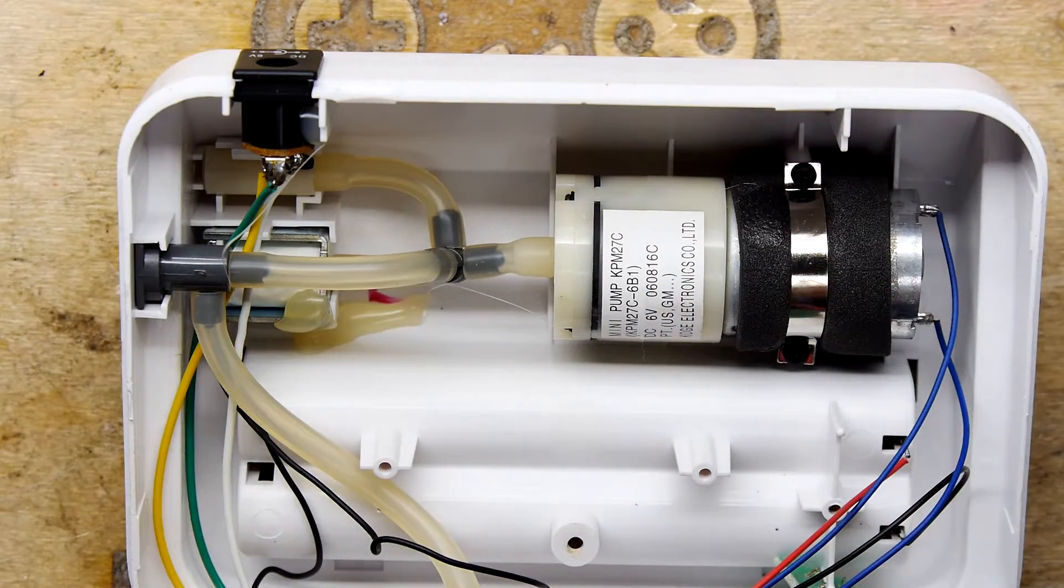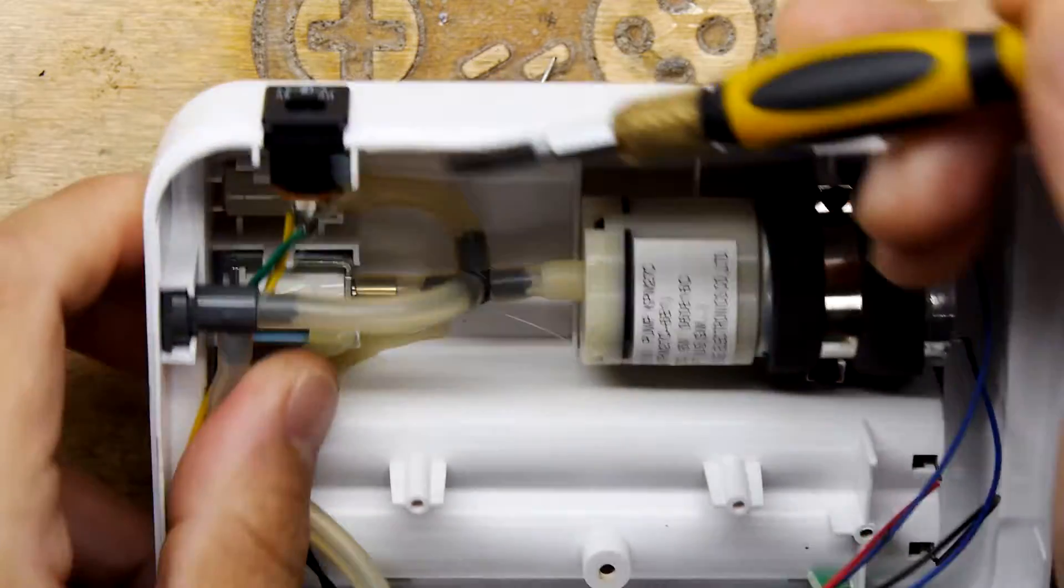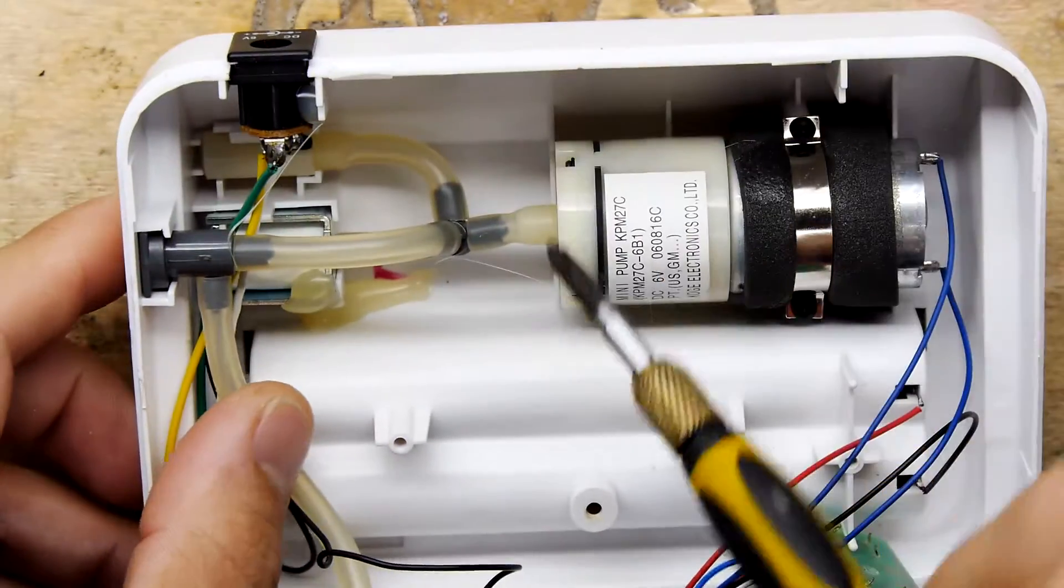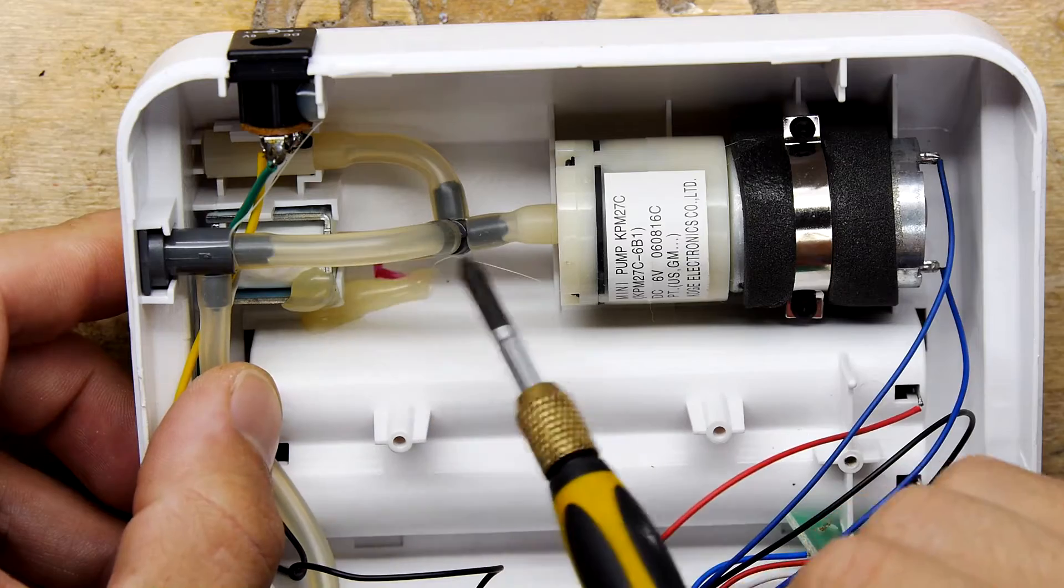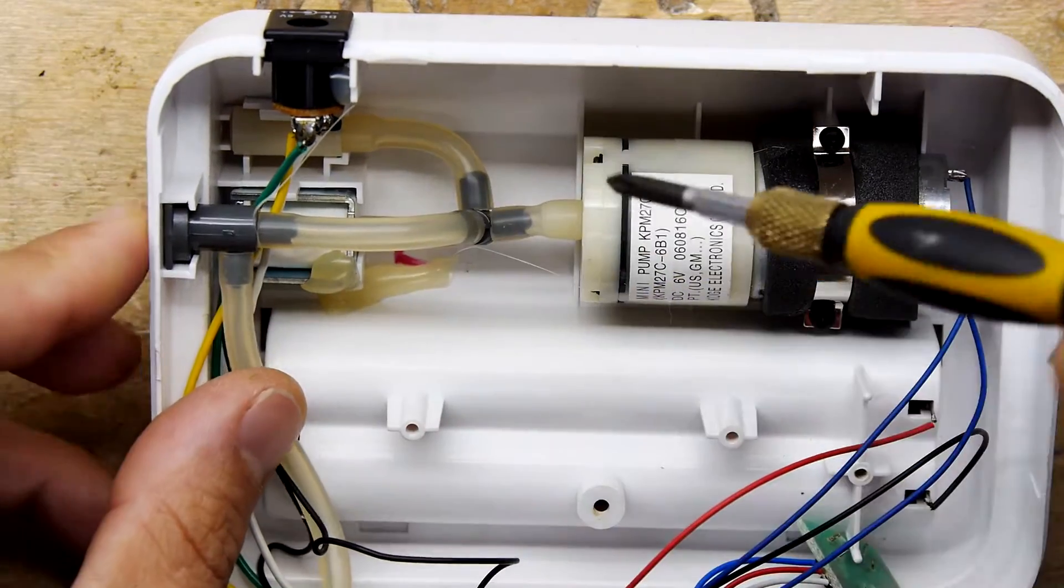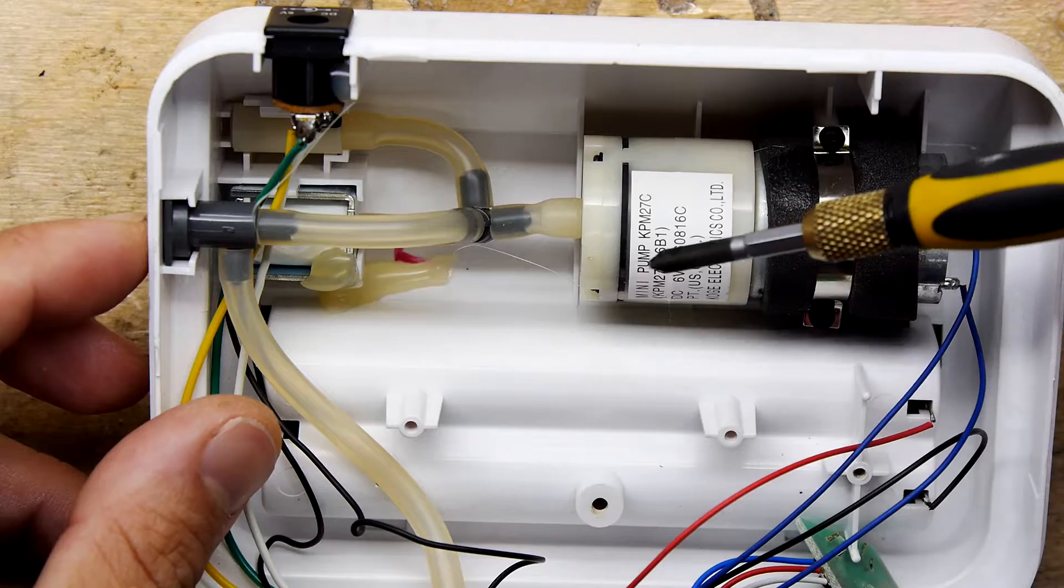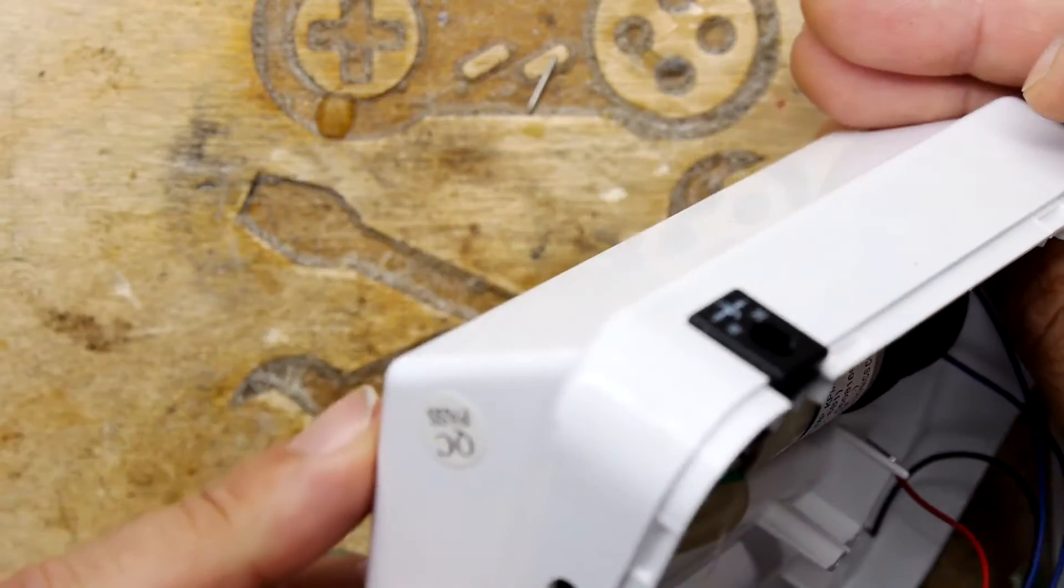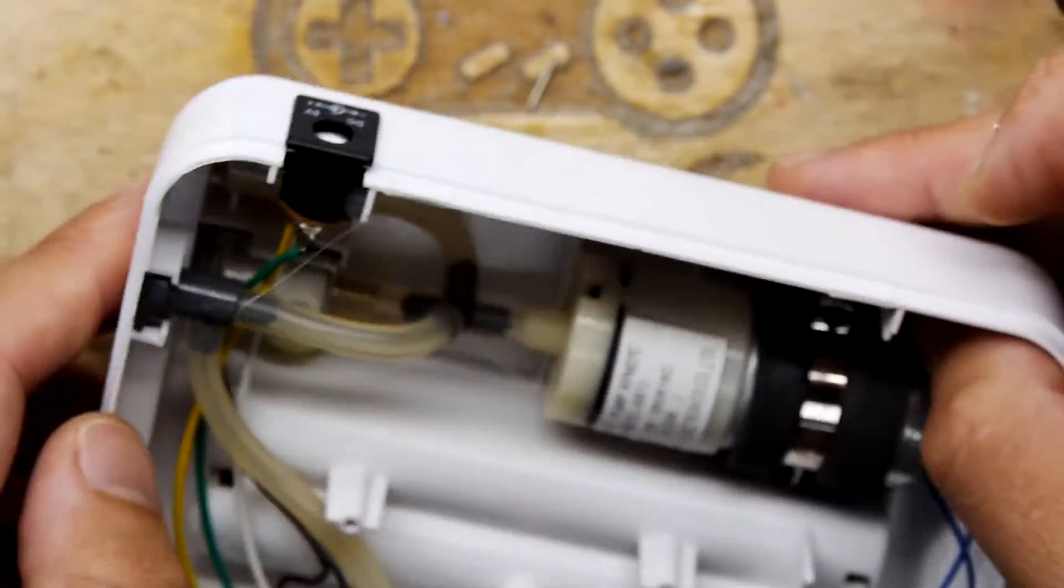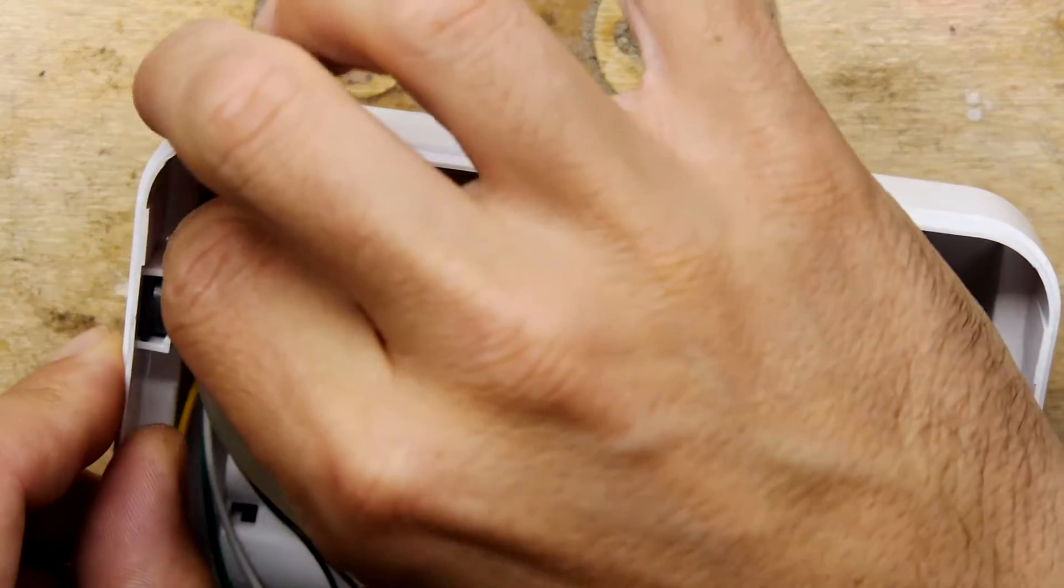And then that got me little thing out. So there it's going through this sort of T-piece block, right? And it's blowing it through here. So I'm guessing it's got to be sucking that air in from somewhere. And I think it could be this. It says it got a pass QC there. There's definitely some sort of contraption in there that looks like it's a port.